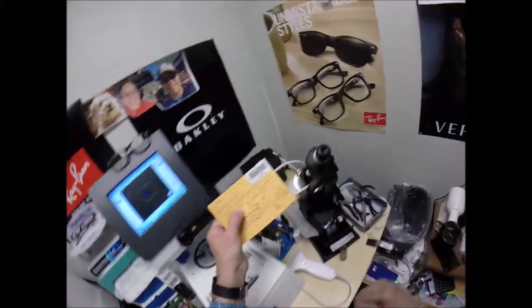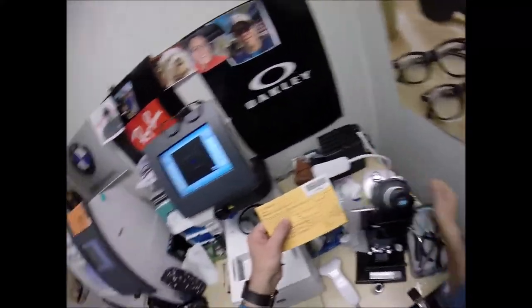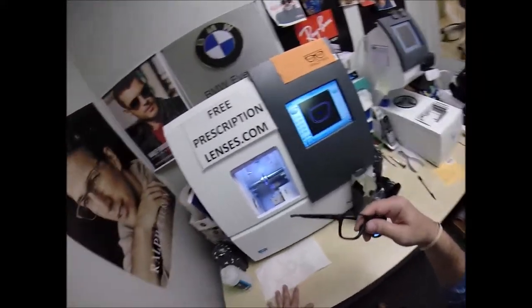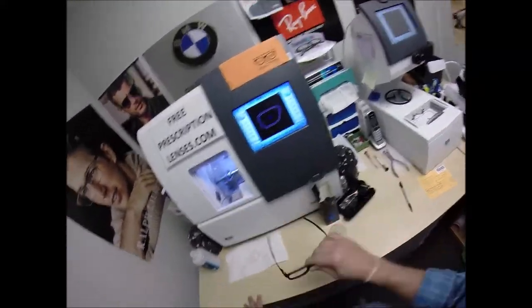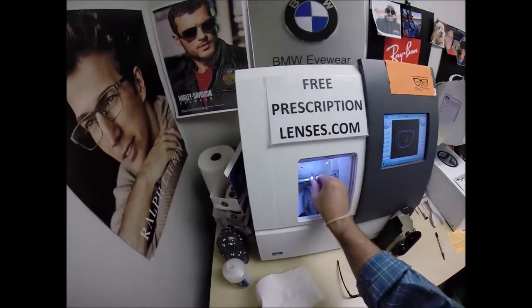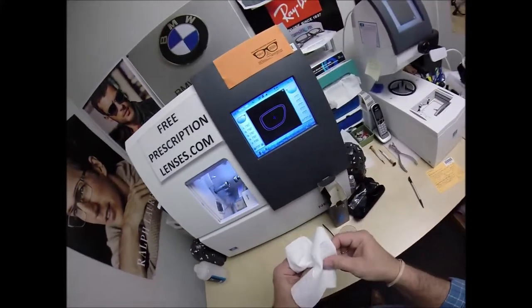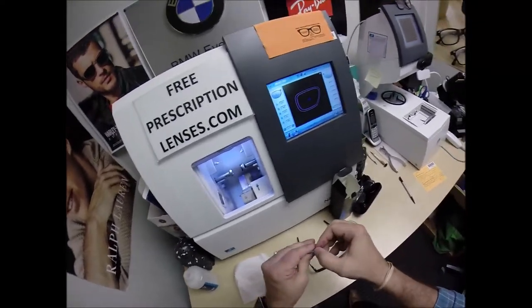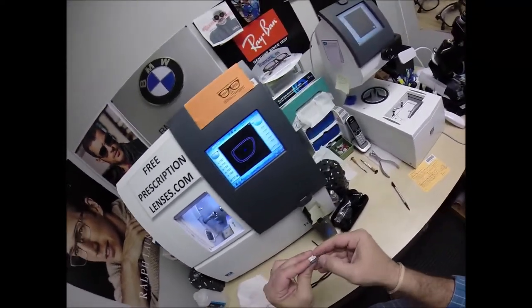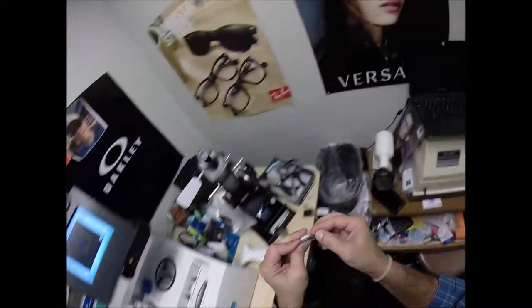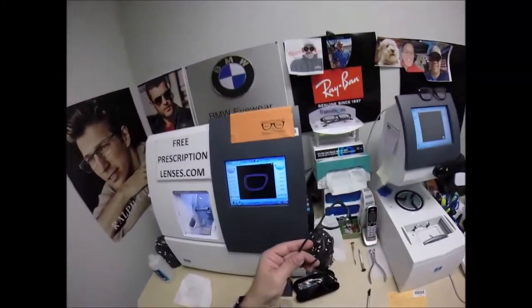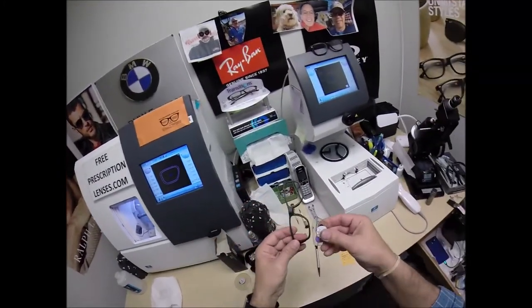Now a lot of places that cut about a thousand pair of glasses a day, they have bosses that tell them you've got to get it out. You've got to get out. Hurry it up. Force it in there. I take care to make sure every care of lenses is cut perfectly. Even if I check myself here, live TV, I see that that was off. I rotate it until it was perfect. And the day will come. I do not walk on water. And I'll get to that in a minute. But a day will come where I will miscut a lens. When that day comes, I'll have to email the person, call them up, let them know what the delay is. But I'm not going to send out any subpar prescriptions or glasses. That's the thing with the internet. It only takes one bad review to ruin you. I make sure everything is done perfectly.